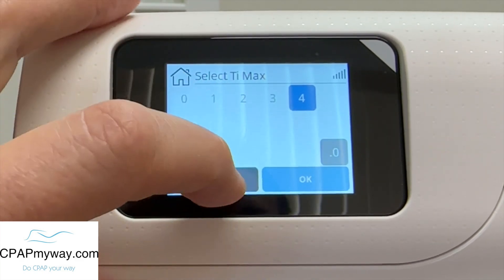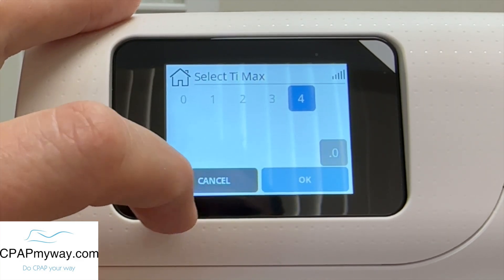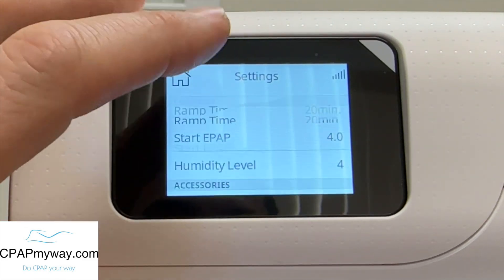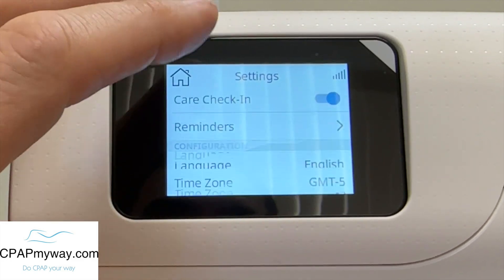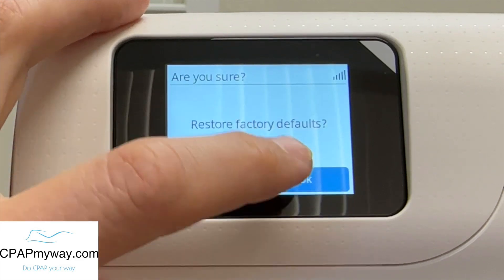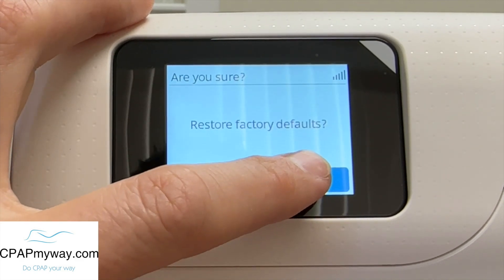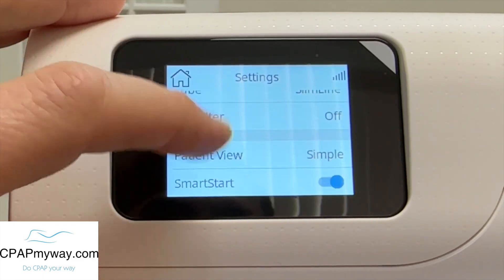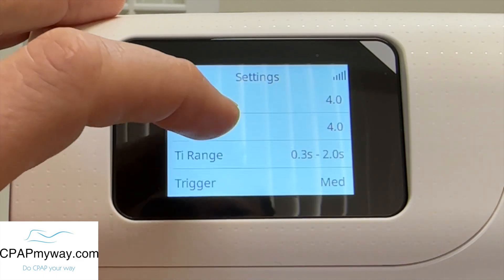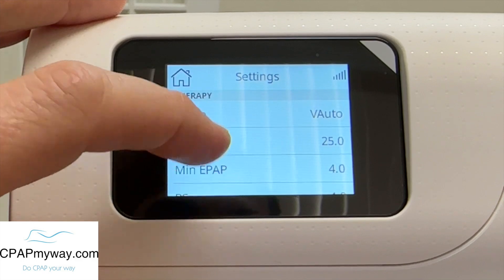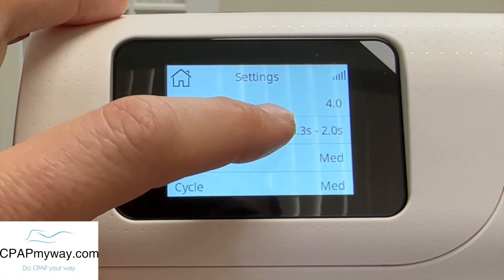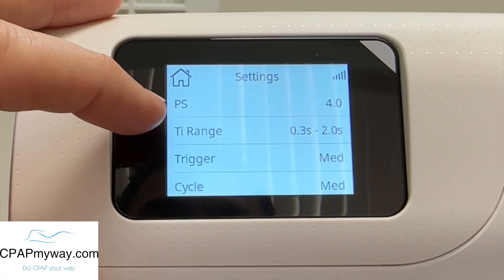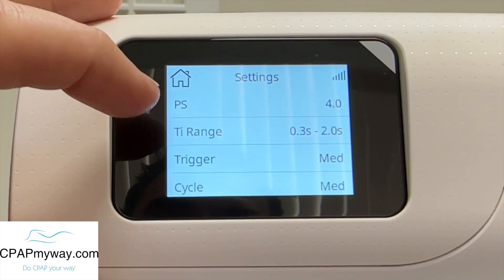One thing that is interesting is if you do that, you can't get back to the 0.3 seconds that comes in the factory settings from what I can tell. So to get back to those settings, you actually have to go all the way down here and restore the default settings. Keep in mind, when you do this, it does change all the settings back to the default factory settings. But now when you go back up, you'll notice your standard V-auto settings will be in there and your TI range will be back to 0.3 to two seconds — I've never really seen anybody change it, to be honest. I'm sure some pulmonary doctors out there could explain why you'd want to change that, but that is where you can change it.